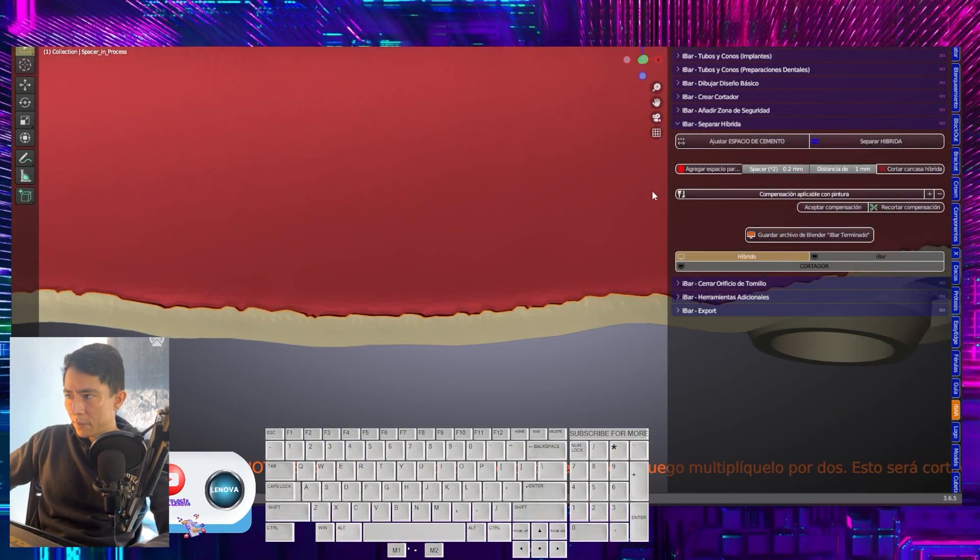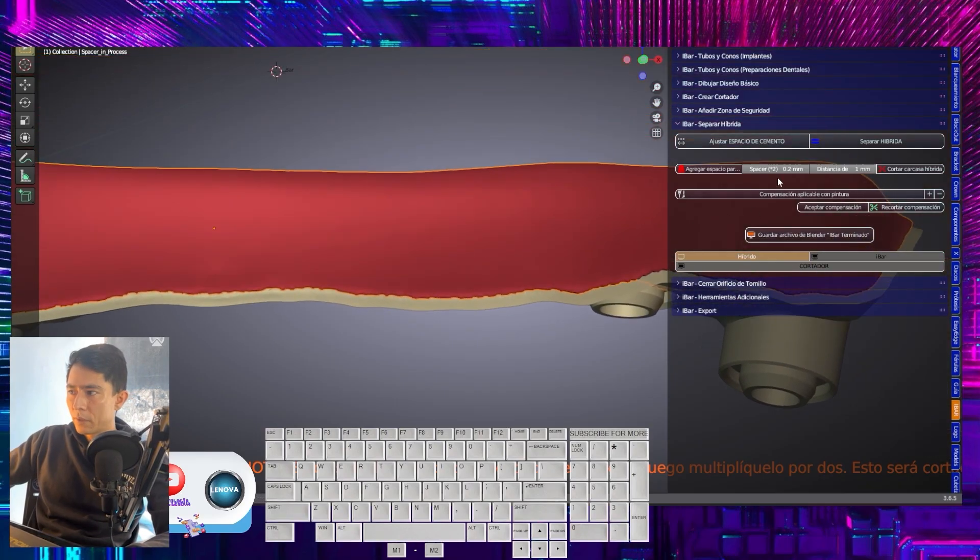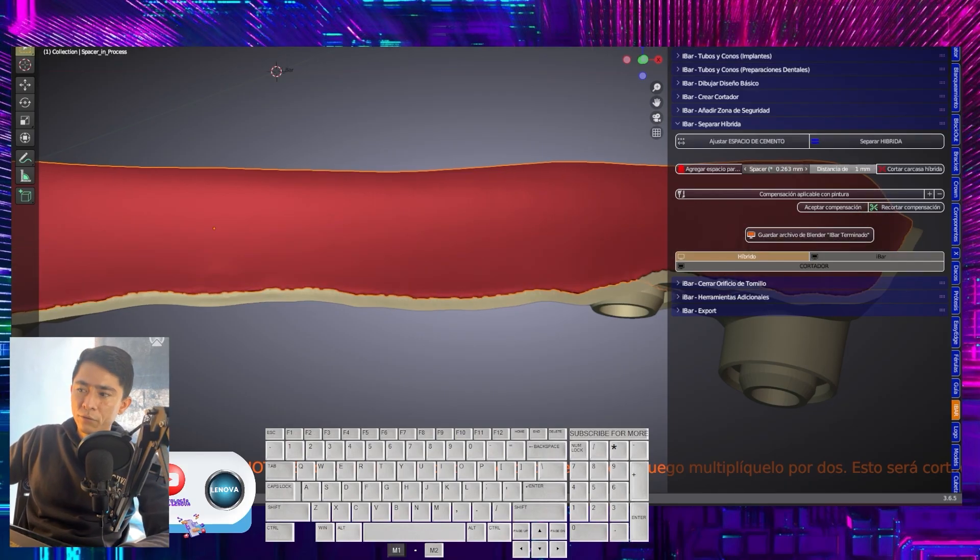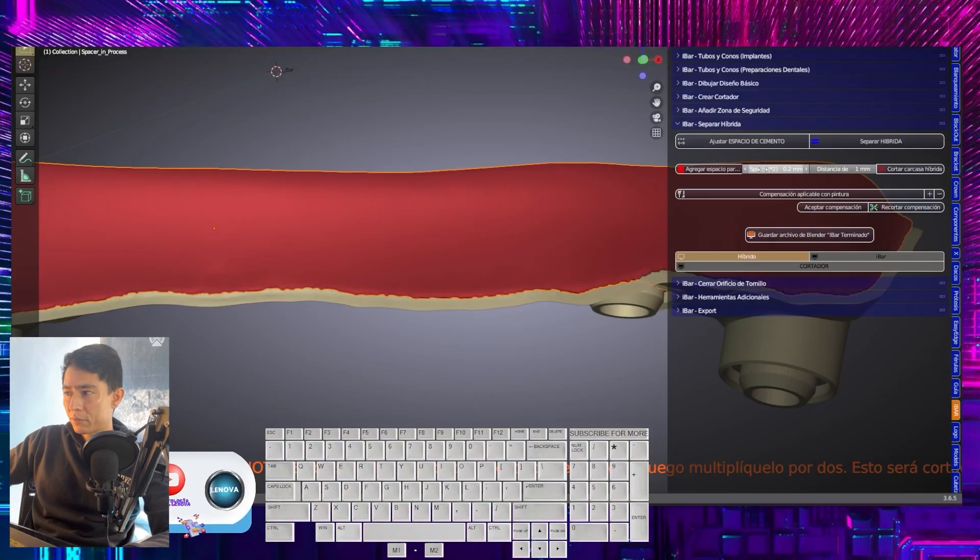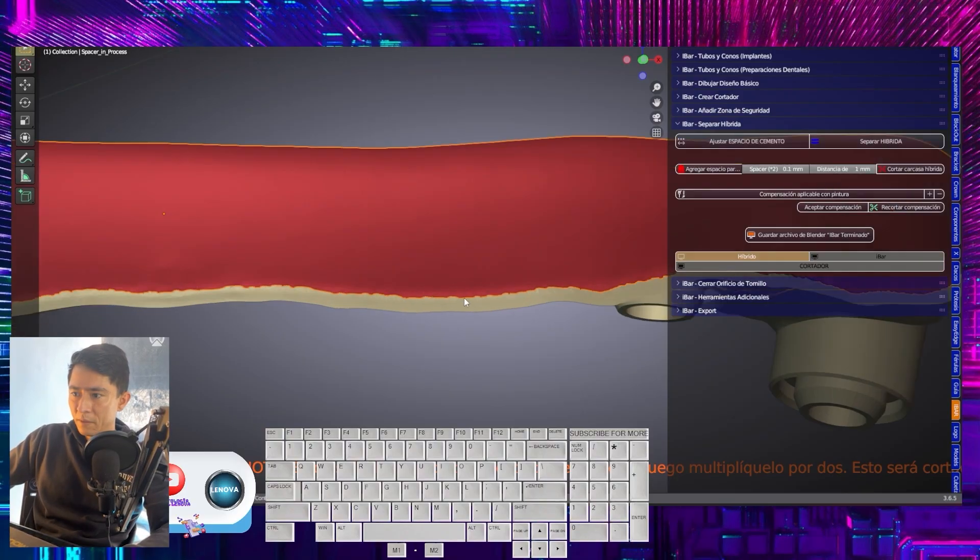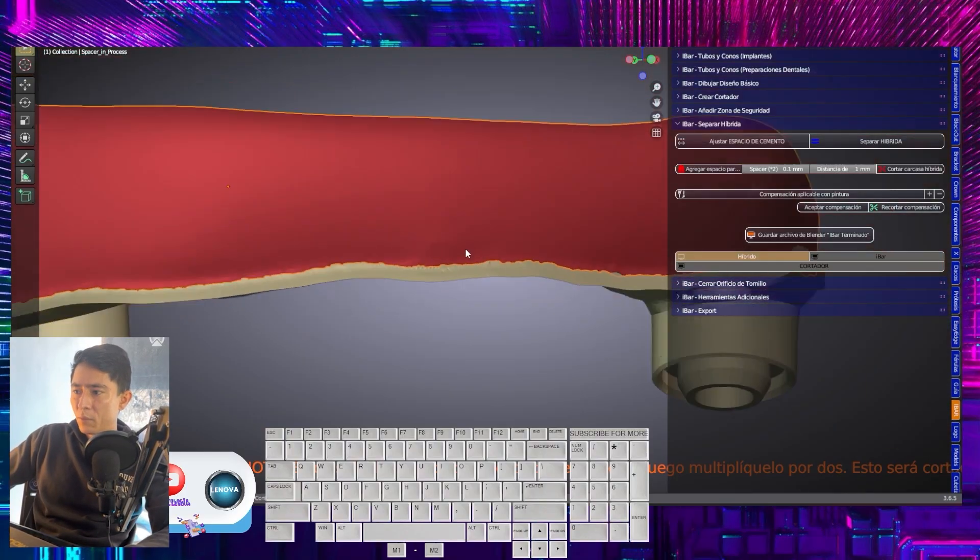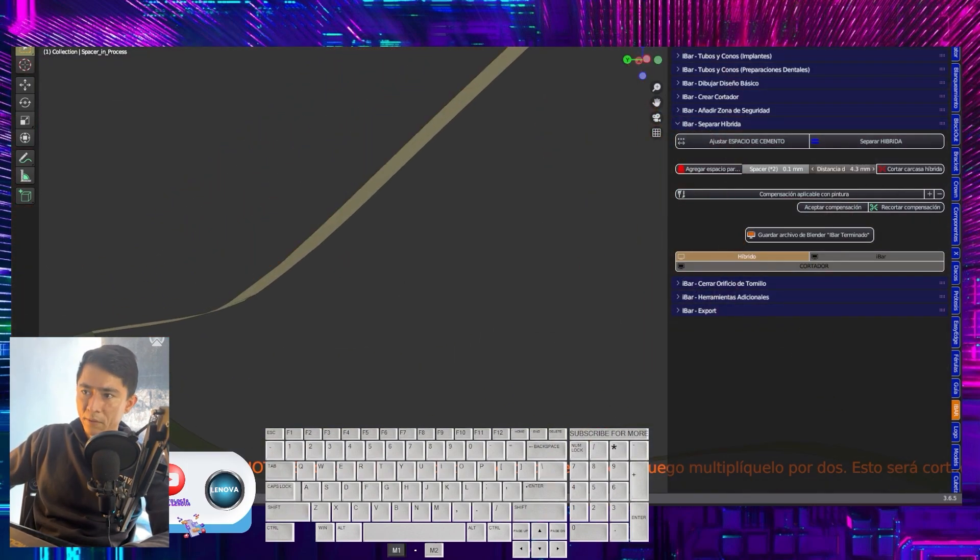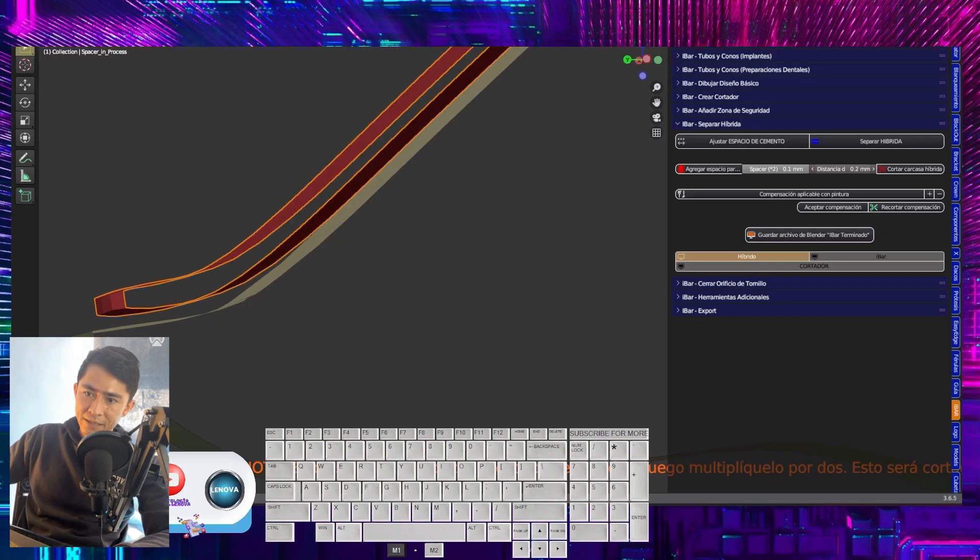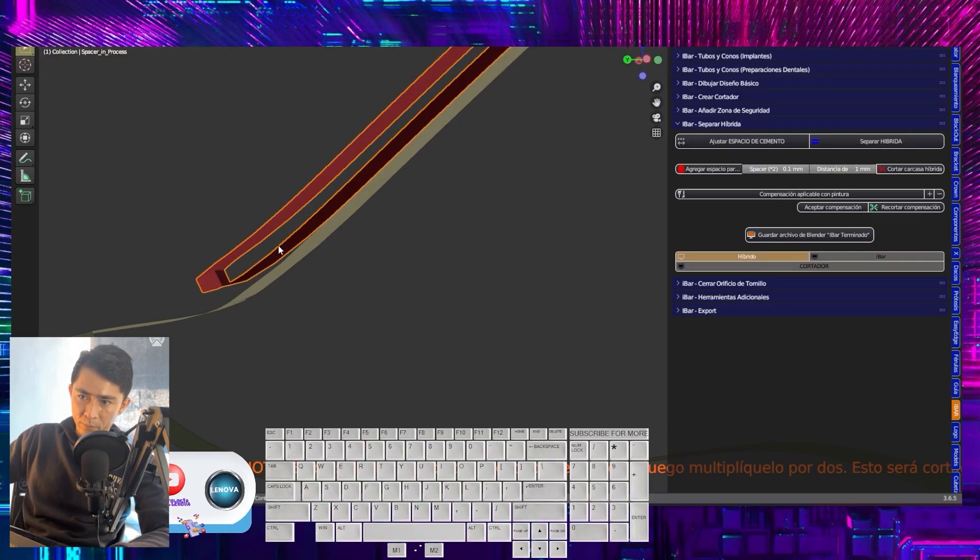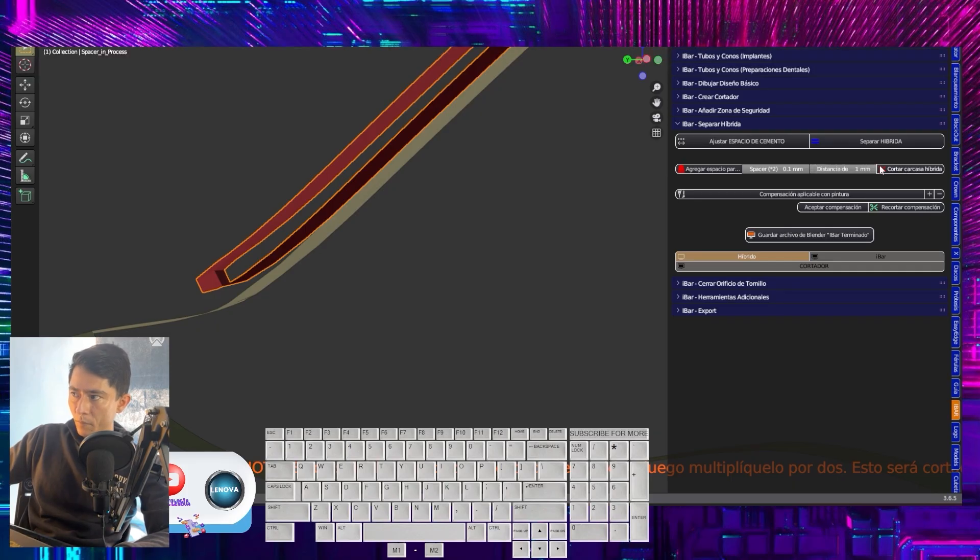Now, here we will be able to correct two things. One, where it says the spacer. The spacer is the thickness that this will have, let's say, like this increment. I will leave this increment at 0.1 as well. The same, but in the distance. I want us to look at it here from the side for a moment. So look, I start. I can leave it flush, but I can also make it slightly smaller. I prefer to leave it at this point, at the point where it creates curvature. I indicate to cut.